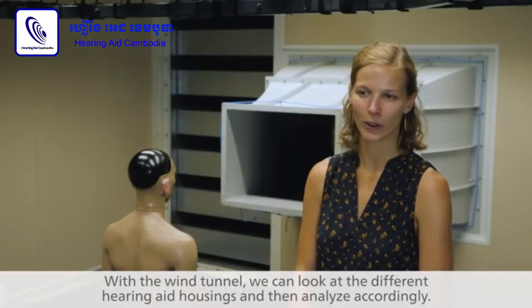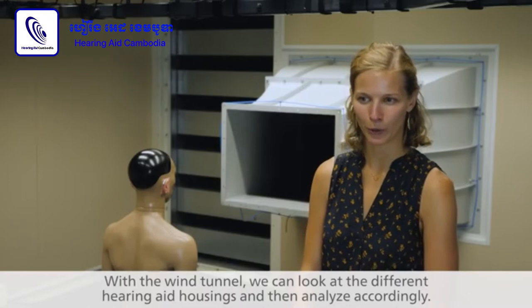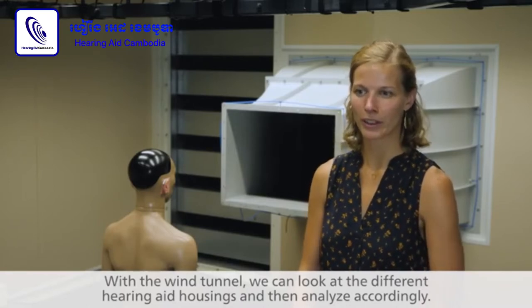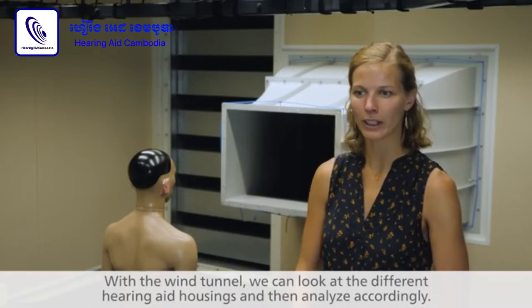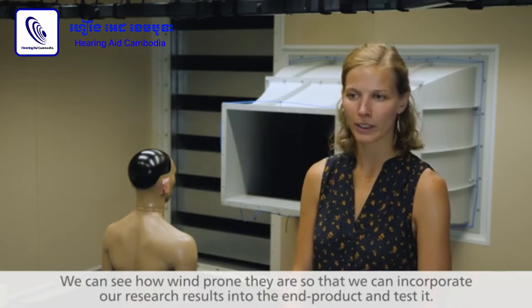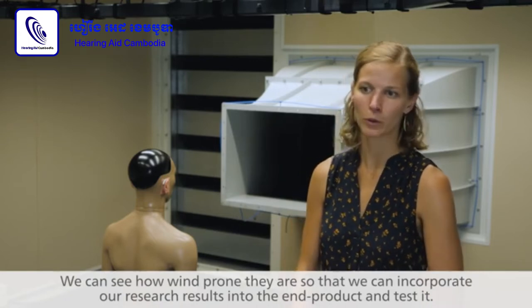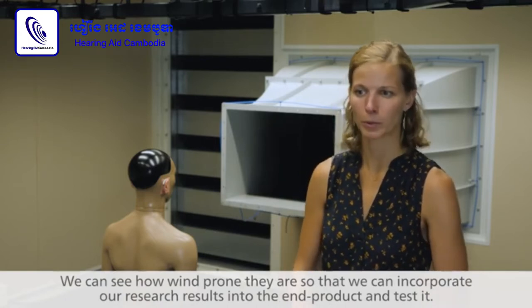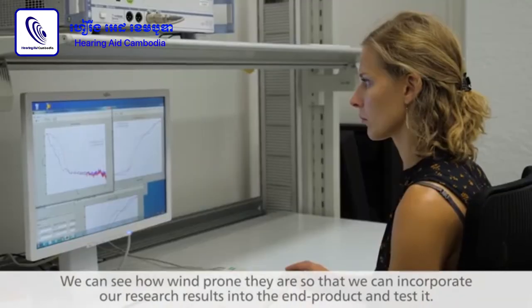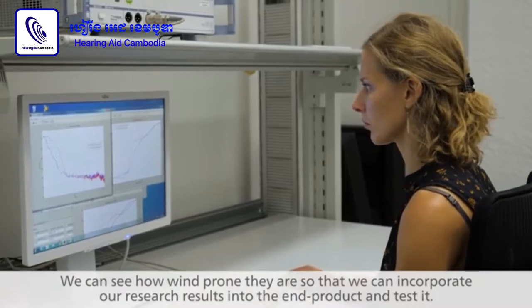With the wind tunnel, we can look at the different hearing aid housings and then analyze accordingly. We can see how wind prone they are, so that we can incorporate our research results into the end product and test it.